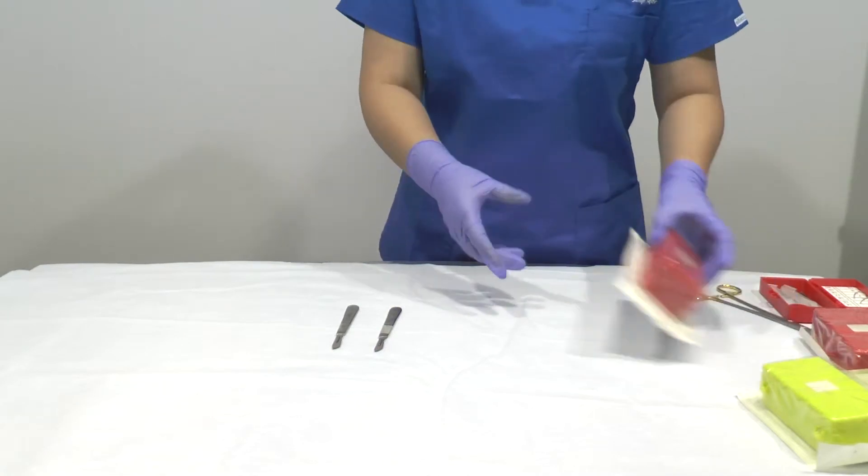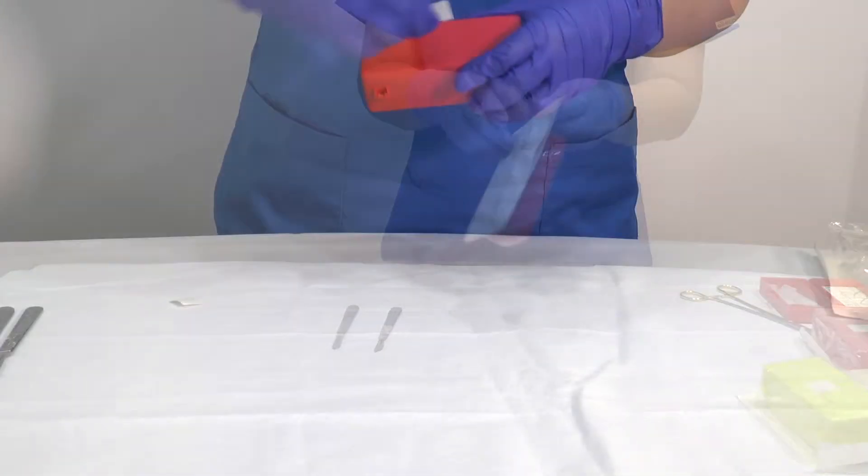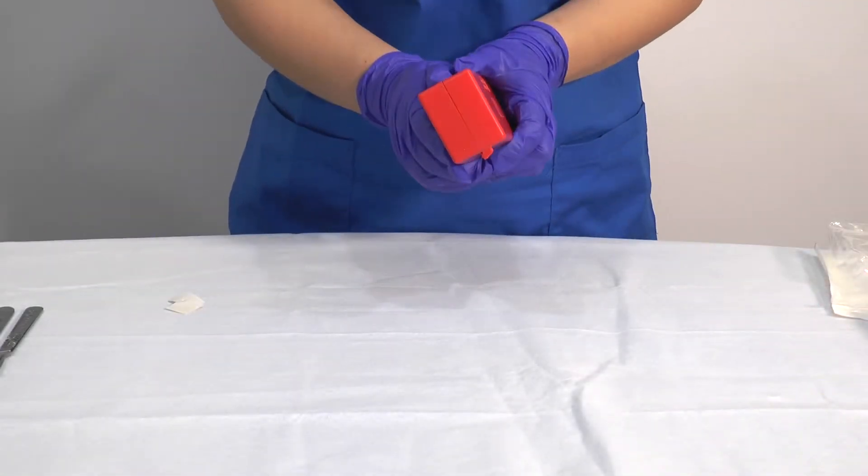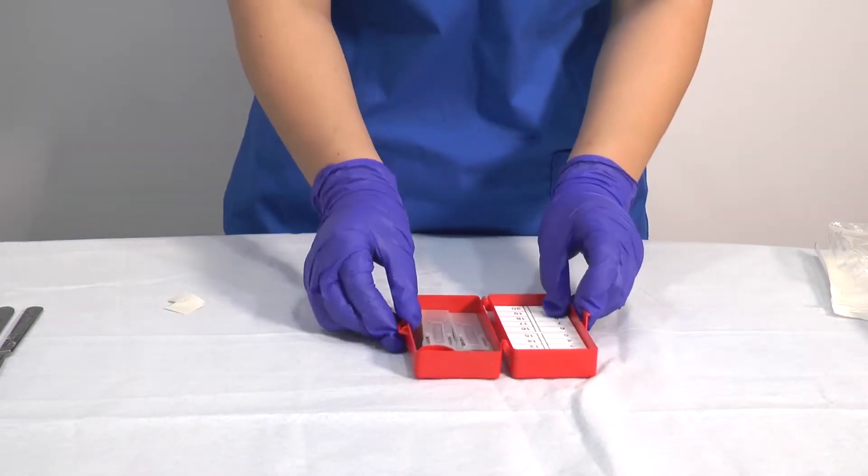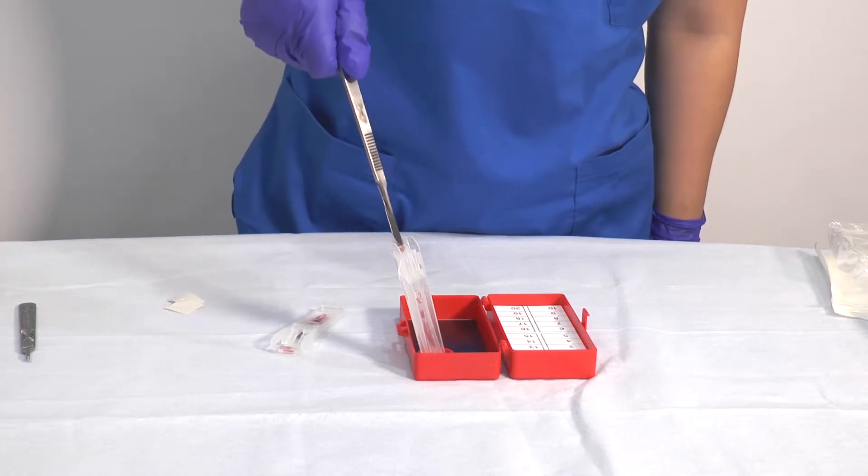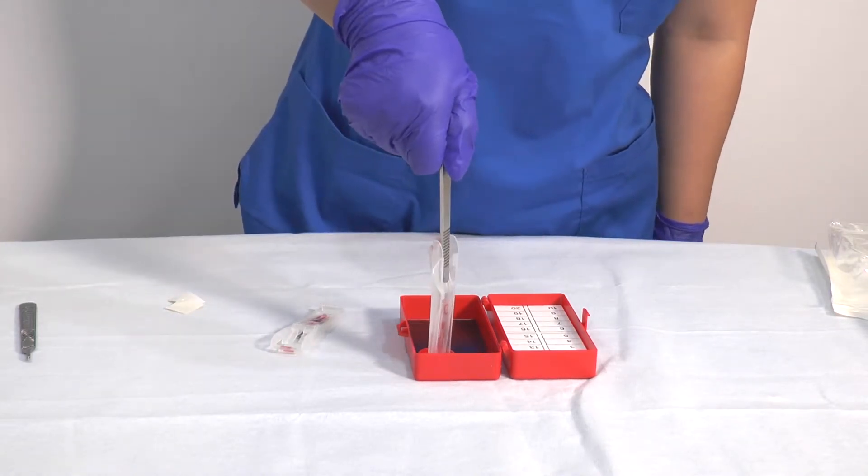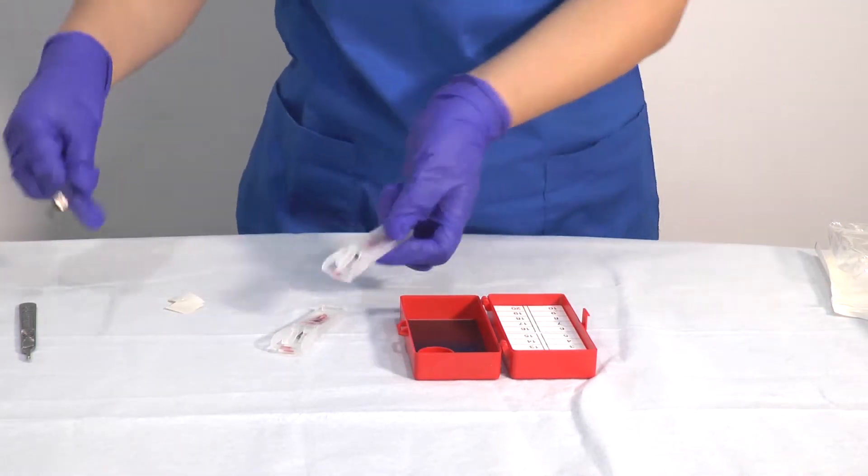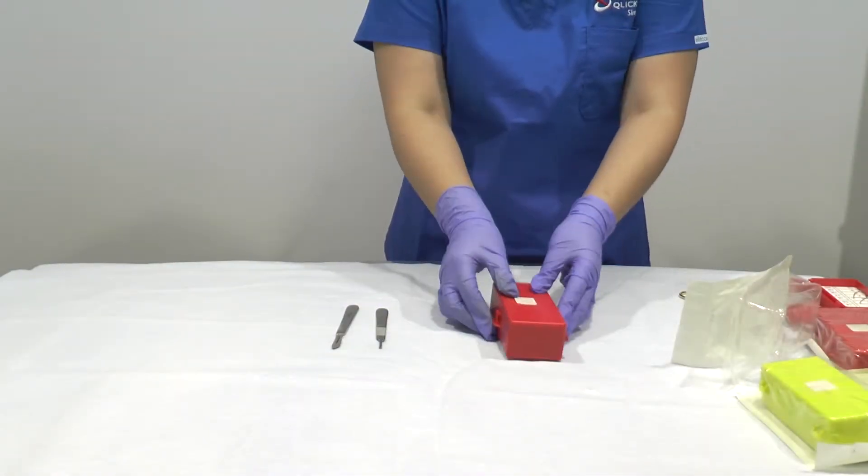The CDC estimates that 385,000 sharps-related injuries occur each year in hospitals, which risks exposing healthcare workers to blood-borne infections such as hepatitis B, hepatitis C, or HIV. Recent data suggests that most sharps injuries can be avoided by using better safety engineered devices.